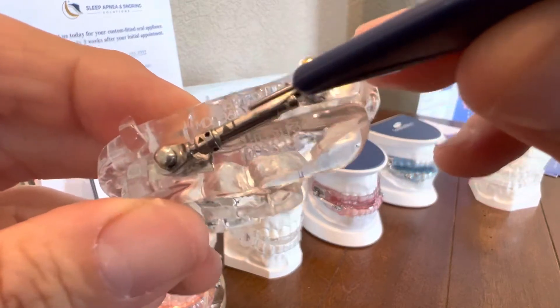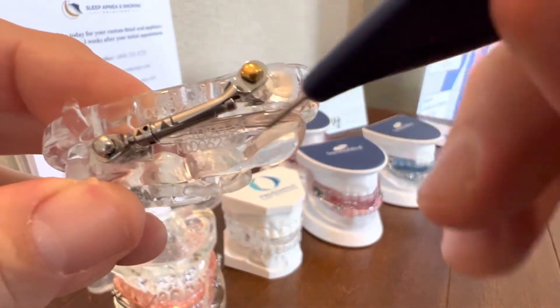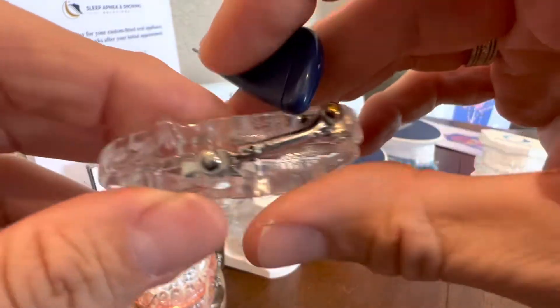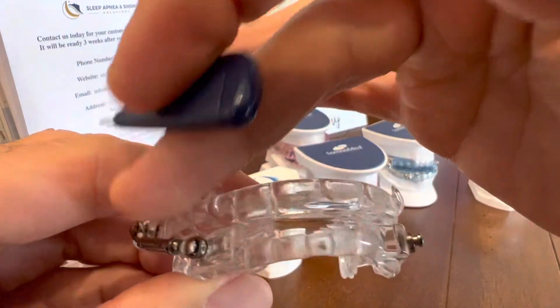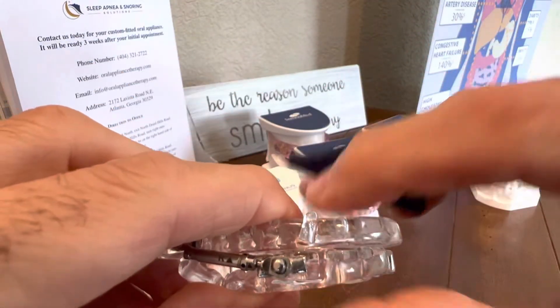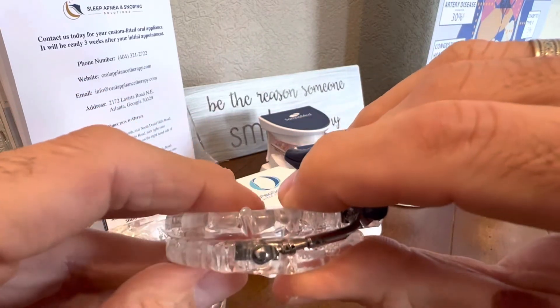You're going to look for the arrow. In this case it's still going in the same direction, but always go from the bottom of the arrow up. Remember what you do on one side, do on the other. Make sure that when you do it on one side, you remember which side you did it on and just flip it to the other side so you don't get confused.